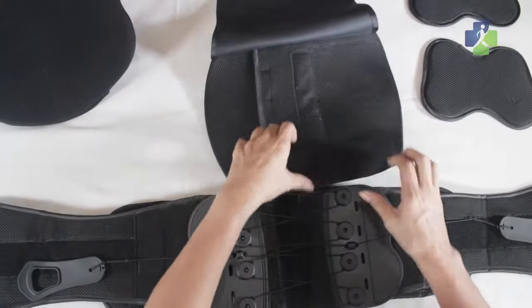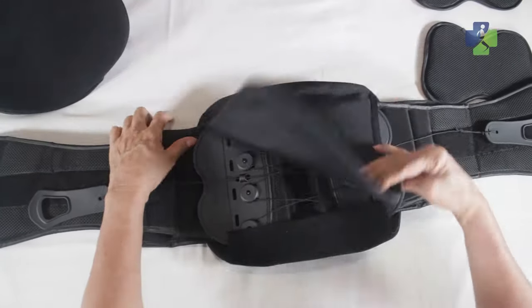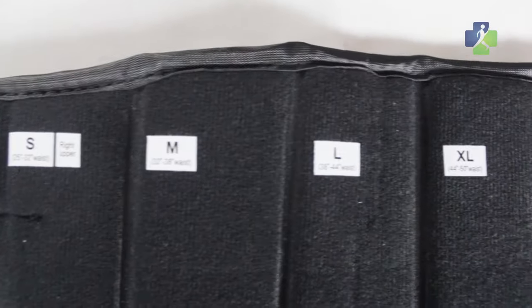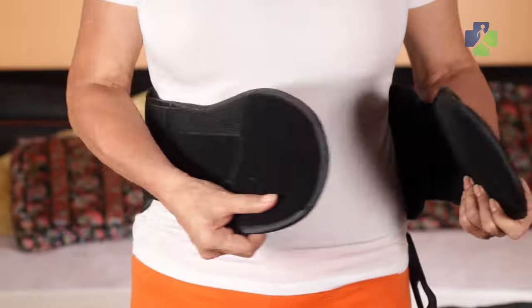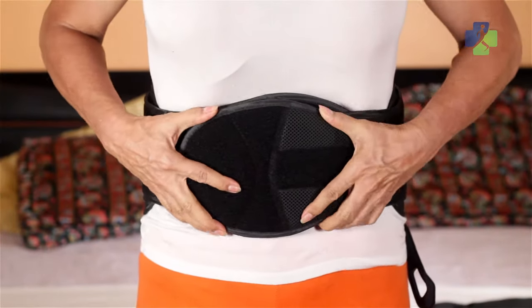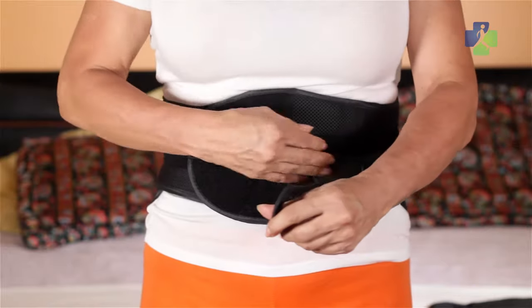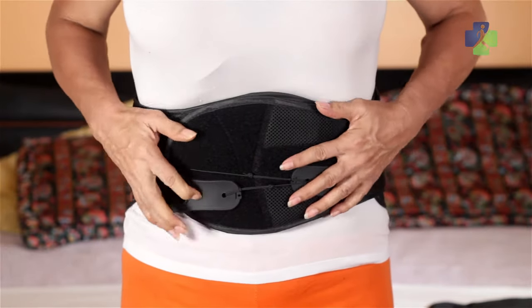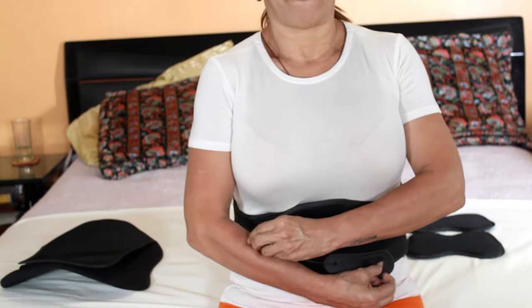To apply, start by laying out all pieces. Open your brace with the inside facing you. Size the width of your brace from small to 4XL. Attach the desired panel. Wrap the brace around your torso and secure in the front. Place your thumbs in the loops and pull forward until you achieve your desired level of support. When you sit, detach the pulley system and readjust once sitting.